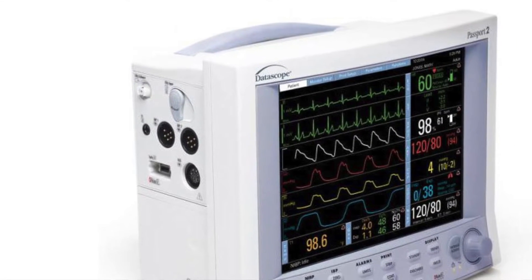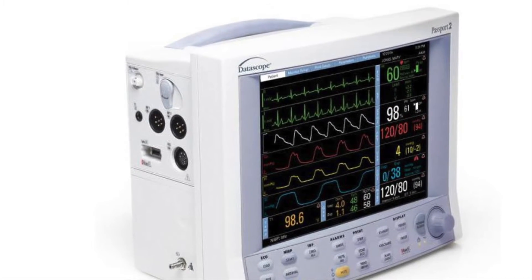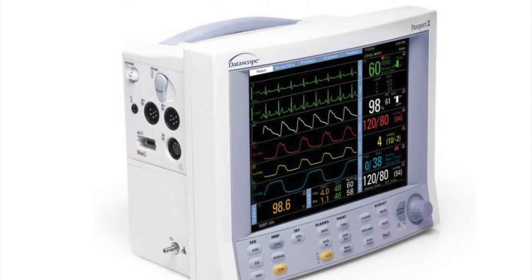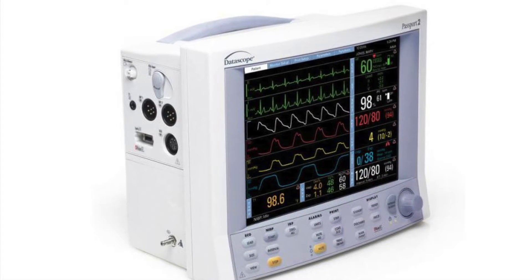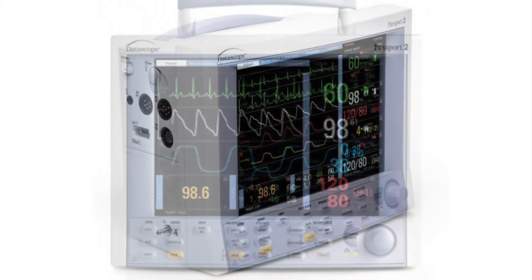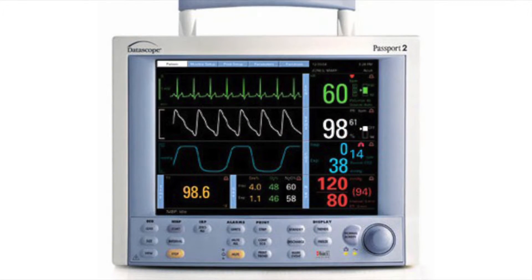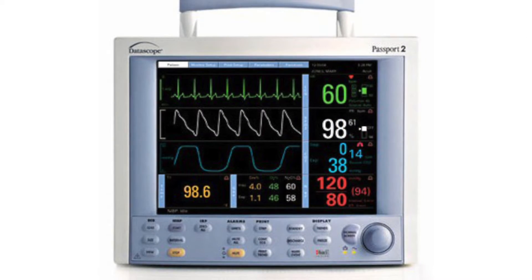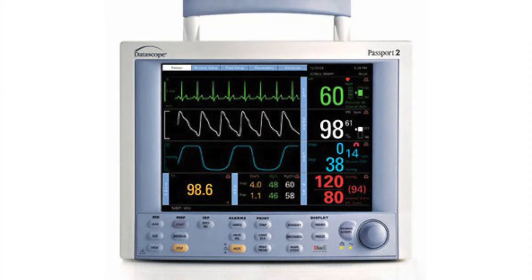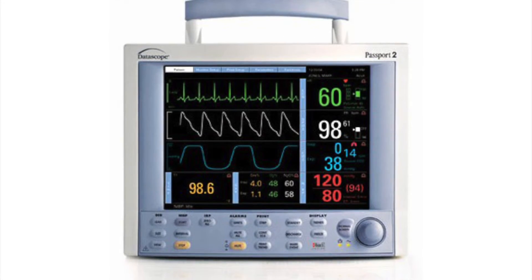Most configurations feature 6 waveforms: 3 or 5 lead ECG with ESU noise rejection, lead selectable respiration, NIBP, Massimo Set Motion Tolerant SpO2, and temperature.